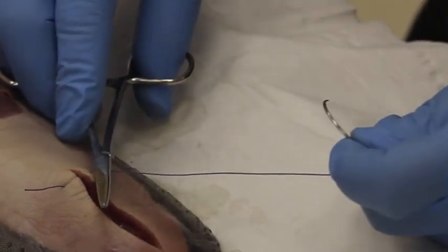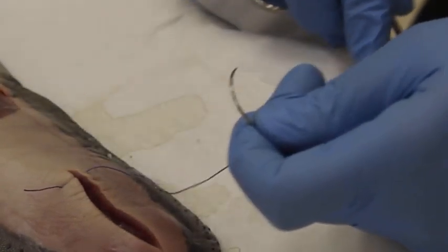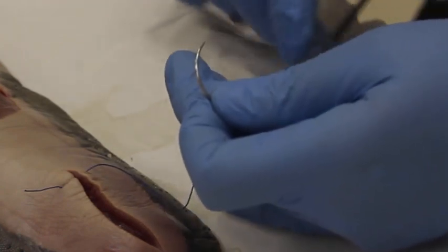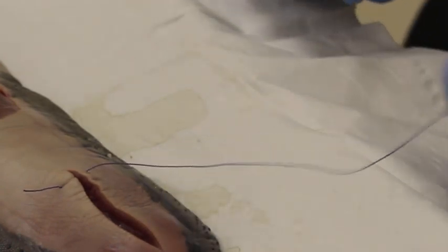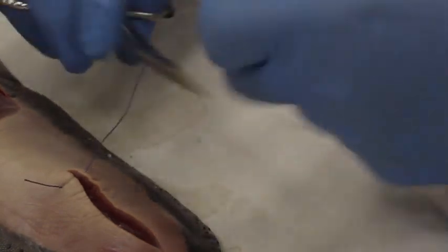If I want to make it shorter, I can pull it down, or I can make it longer by stretching my hand. Then you can now tie your stitch.